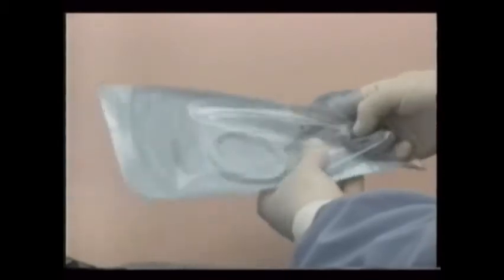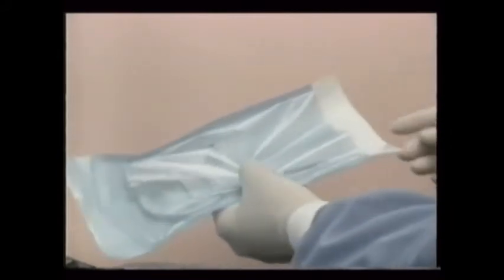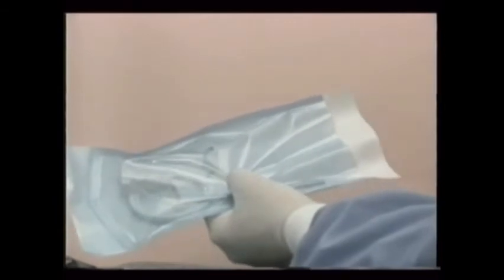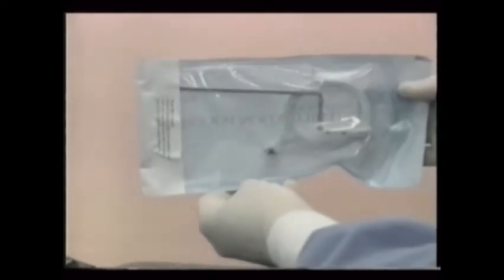By following the concept of universal precautions, which states that we should assume that all patients are infectious for the worst of diseases, you make sure that every reusable instrument is sterilized between patients. Regarding dental x-ray, this applies to the film holders. By grouping them and wrapping them to keep them together, much assembly confusion can be avoided.